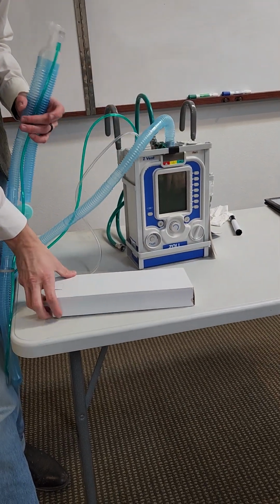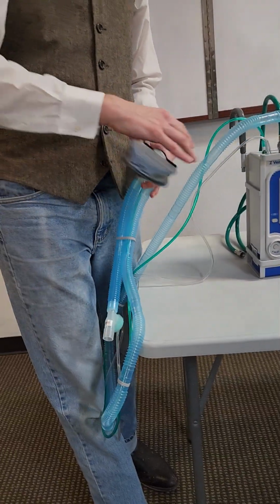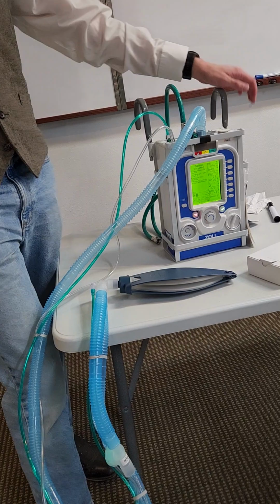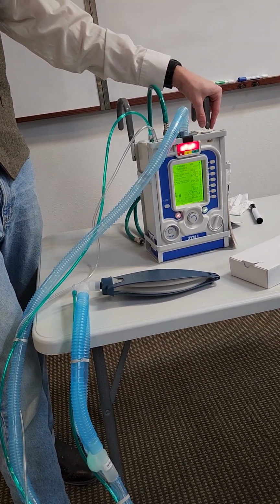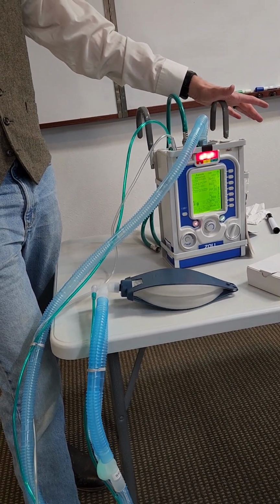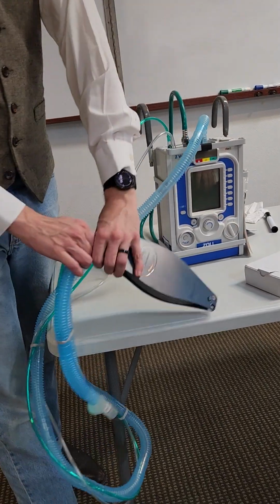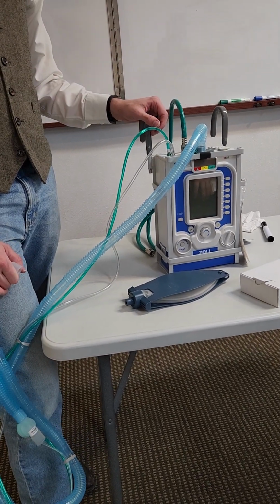So turn it on, and let's say we turn it on but we don't have a patient attached to it, it's going to say there's your alarm, patient detected, and it's going to immediately bump into ventilating. The reason it does this is because if you hook it up to a patient and it detects that, then it's going to be like, oh crap, we've got to ventilate right now. So there's that. But like I said, for now, we'll just start it without one. And we'll slowly work our way through the modes.